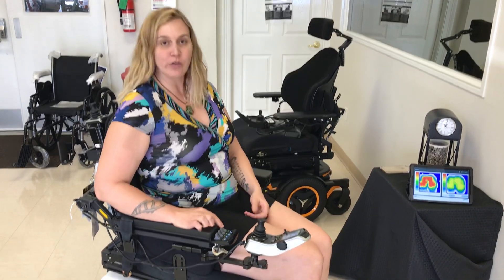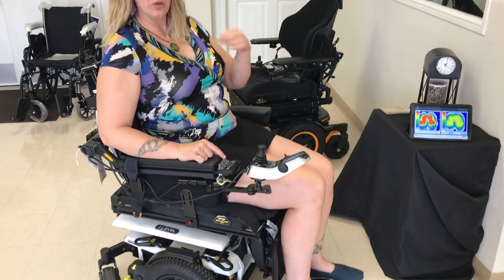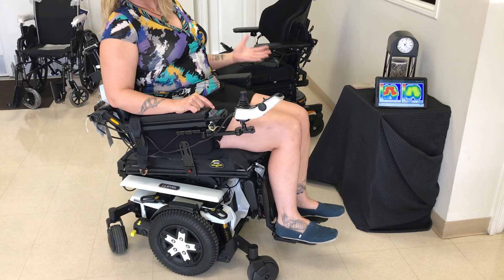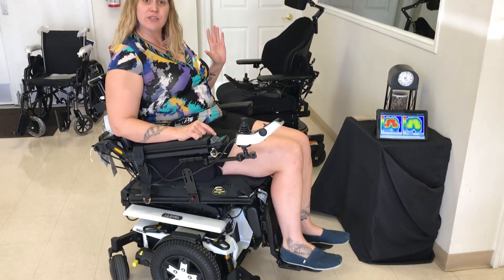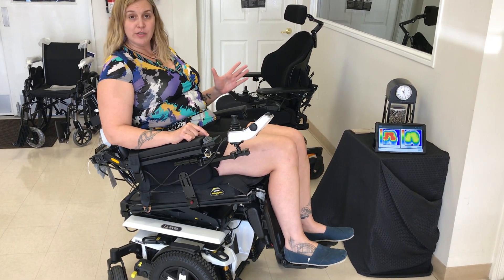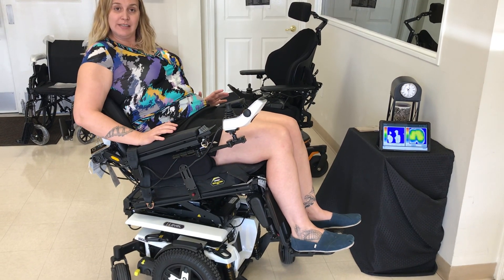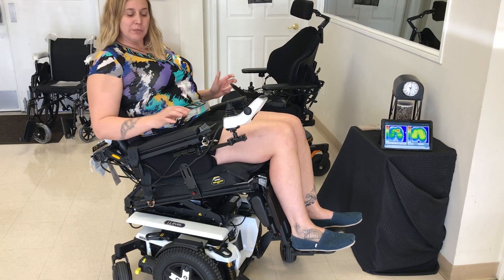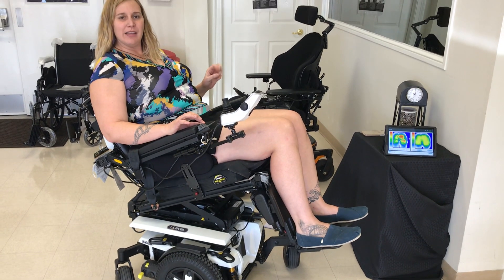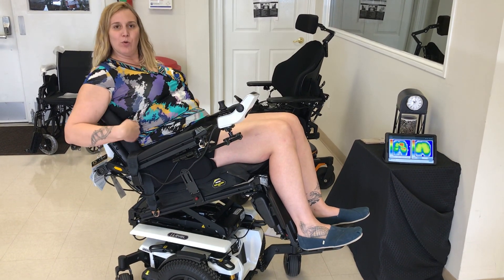Tilt is where the whole chair rocks back, so you can see that the whole chair is changing, but none of the angles are changing. This feature is really helpful for offloading — if someone can't take their weight off their seat, which is really needed for skin protection, this is the feature that helps with that, because it transitions the weight to be more on the back.